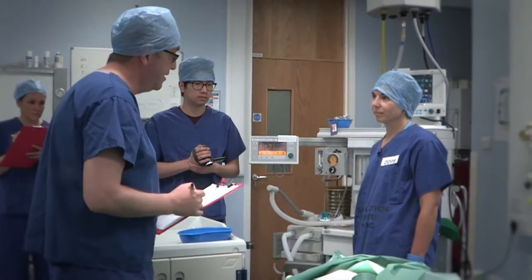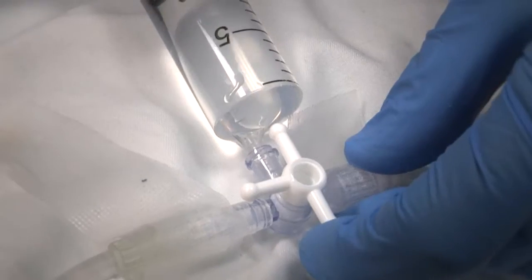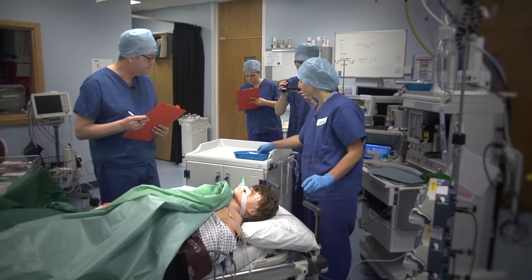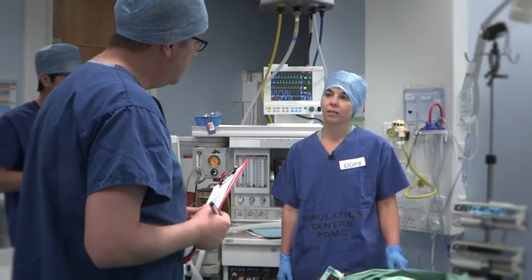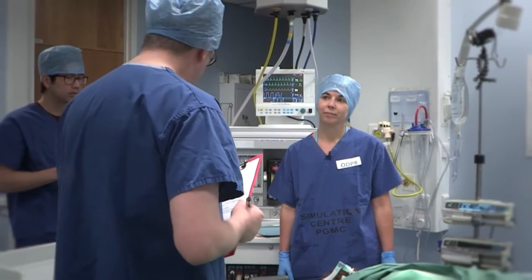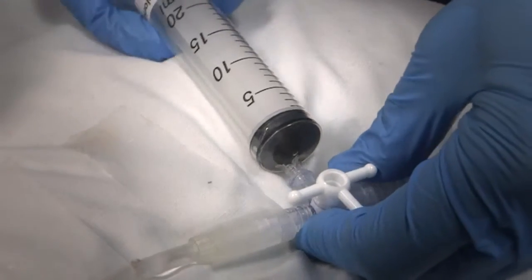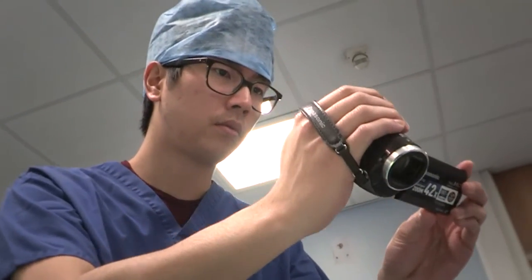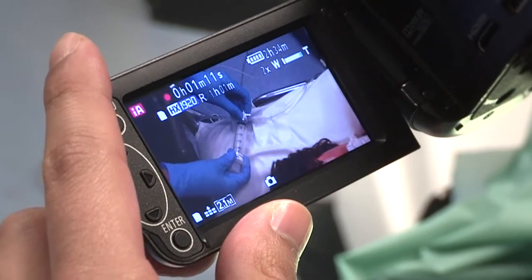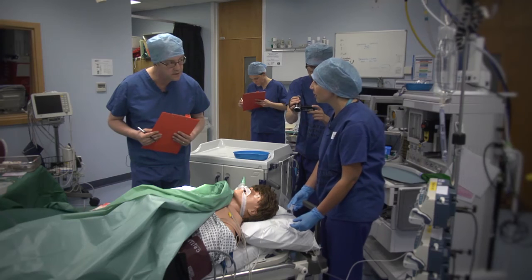Could you now please flush the line with saline? Did you have any difficulties flushing the line with saline? I found attaching the syringe to the line a little bit tricky. Would you mind showing me again how you did it and tell me why it was tricky? I'm using my right hand to attach the syringe, and I may be finding that a little bit tricky because I'm actually left-handed. Taking the syringe out as well was a bit tricky, but that may also be due to the fact that I'm left-handed.